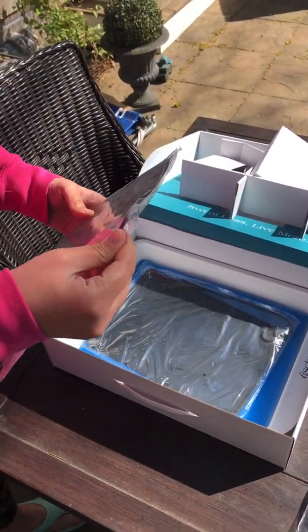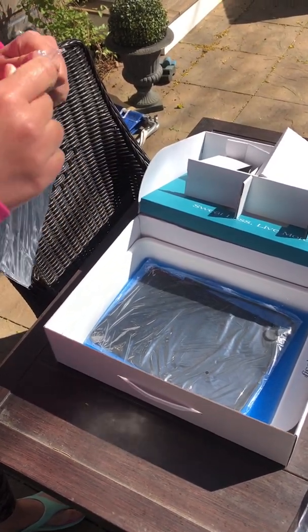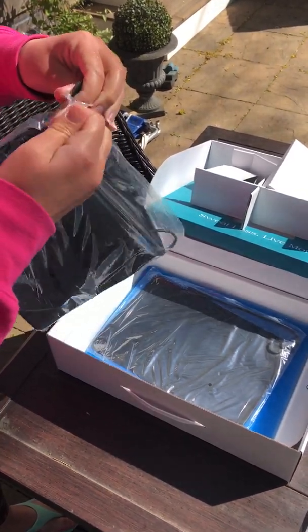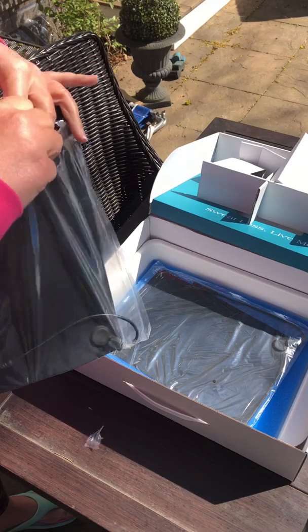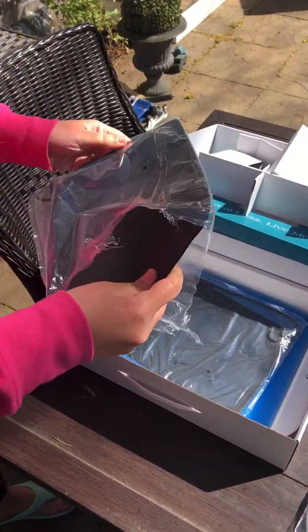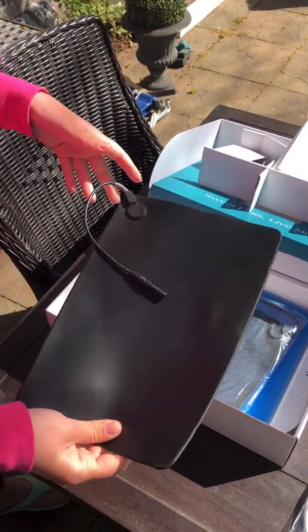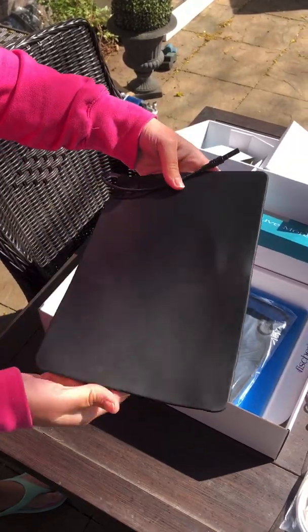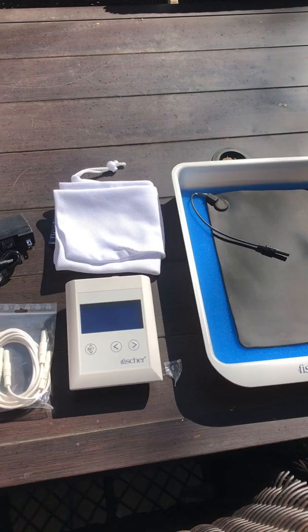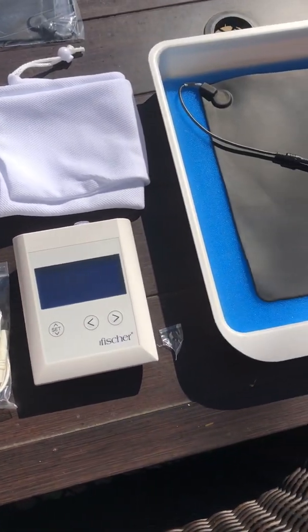The electrodes are also no longer metal. These electrodes are made of a nice silicone material and also contain graphite which gives them their conductive abilities. I struggled with rust on the metal plates of my previous machine and some skin irritation, so I'm very excited to try these out and not have some of those same worries. The silicone is nice and thick so I have a feeling they will be very durable and hold up well over time during the course of treatment and also be very comfortable.